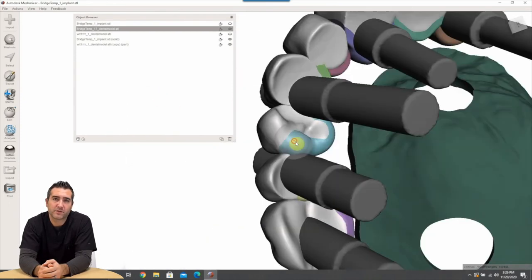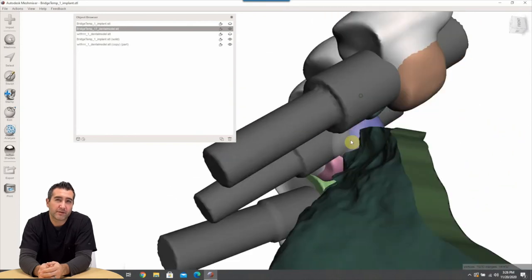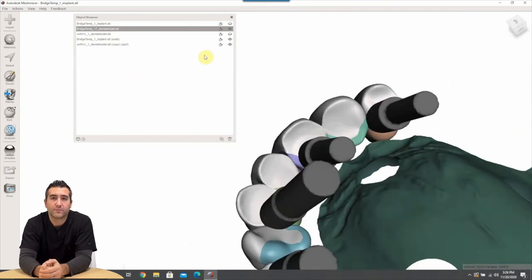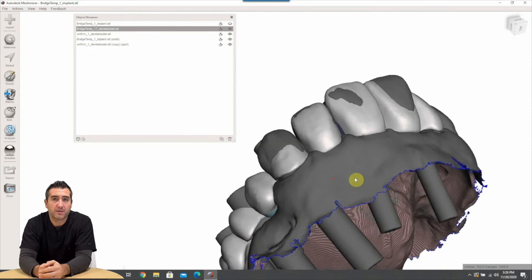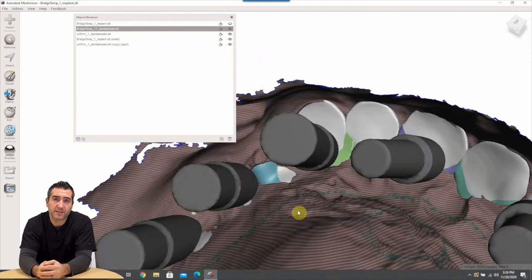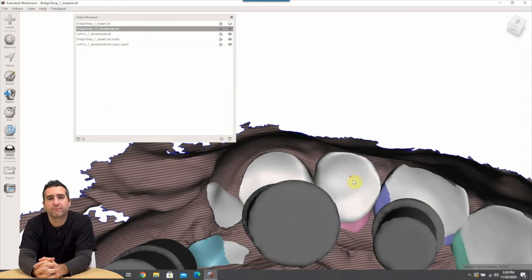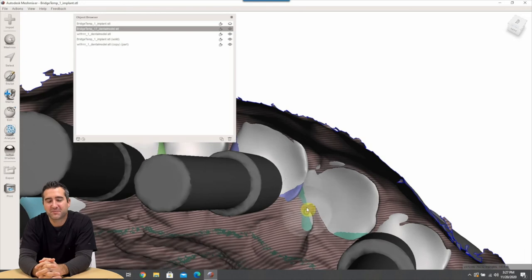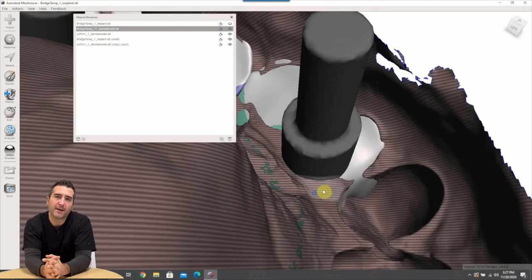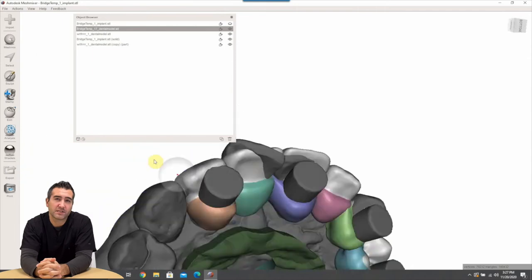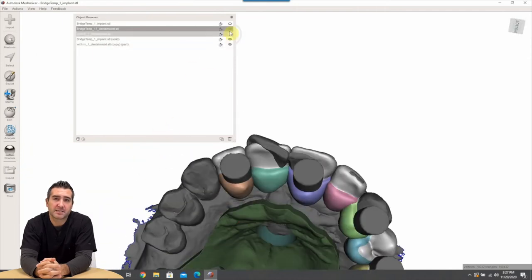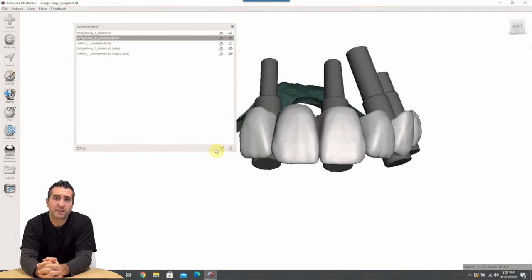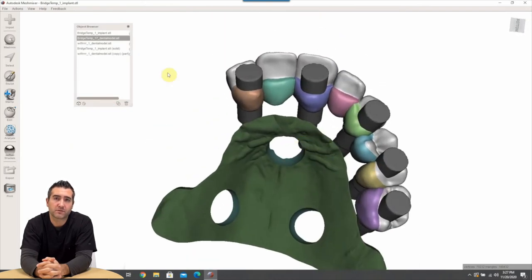So you want this thing to be wicked strong which is why milled currently is a little bit better than 3D printed but either way we've done it both ways every day twice on Sunday. But the best thing to do is bulk it out when I'm down, so make sure to make it strong. I'm going to alleviate some pressure on the tissue down there just to help with the pickup so that it's not binding, even though in this particular instance we're not doing osseous reduction and it's even more critical not to have it too bulky there on the cervical area.